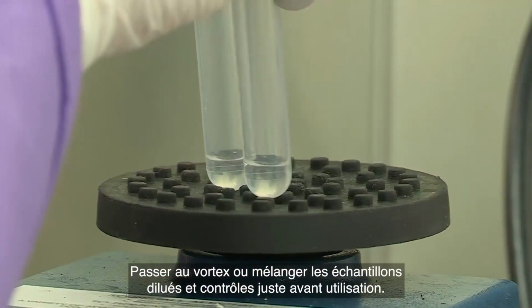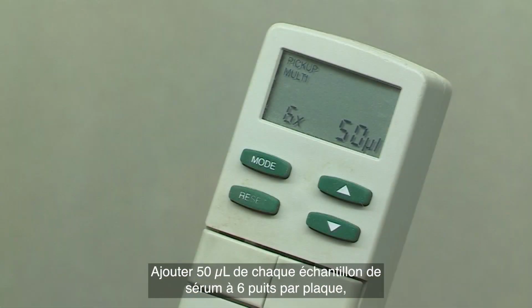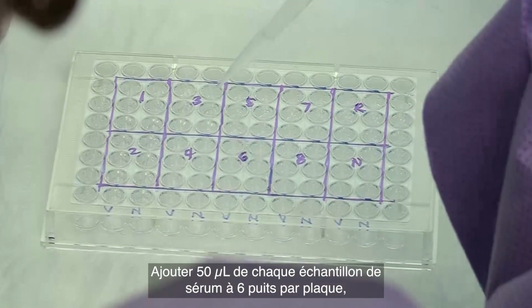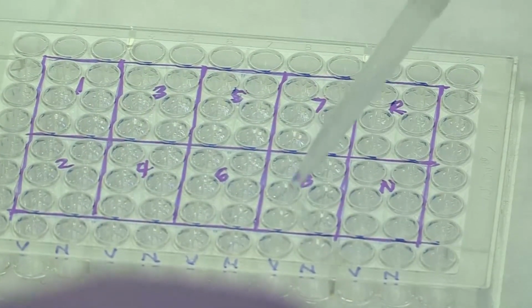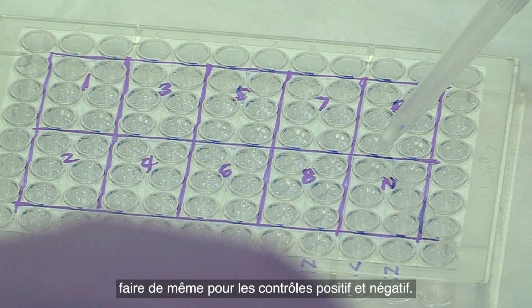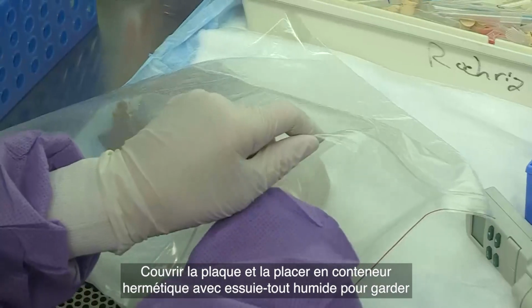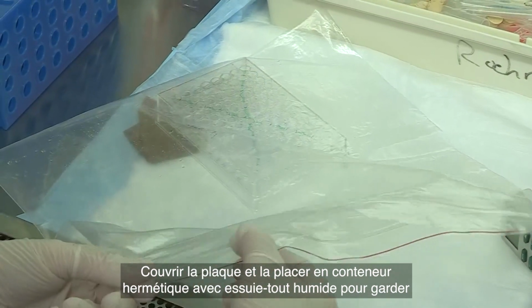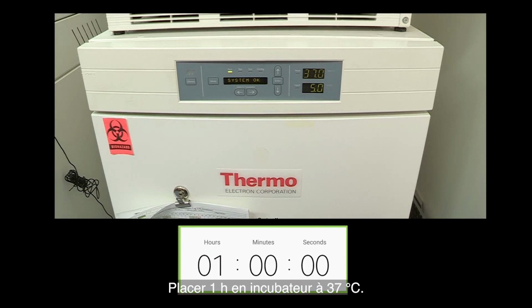Vortex or mix the diluted test samples and controls immediately prior to use. Add 50 microliters of each serum sample to 6 wells per plate and do the same for the positive and negative controls. Cover the plate and place it in a sealed container with wet paper towels to keep the environment humid, or use a Ziploc bag with paper towels. Place in a 37°C incubator for 1 hour.